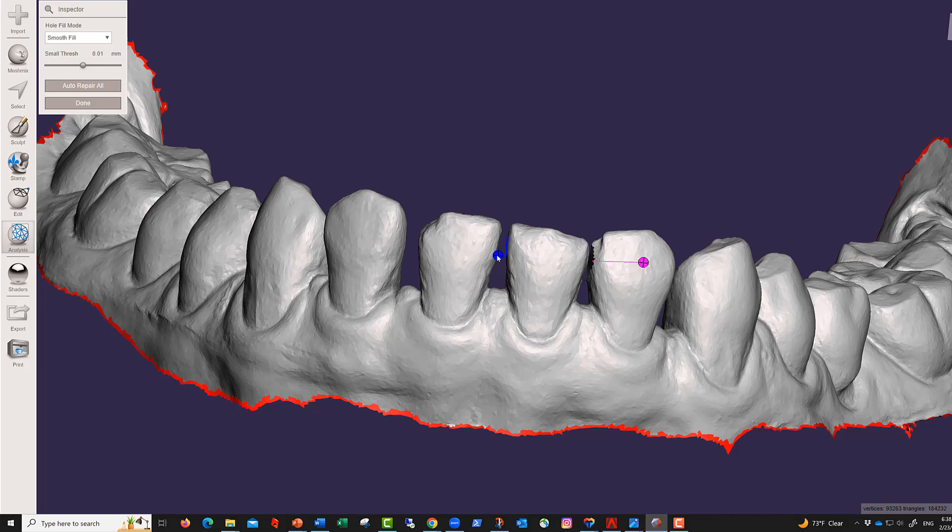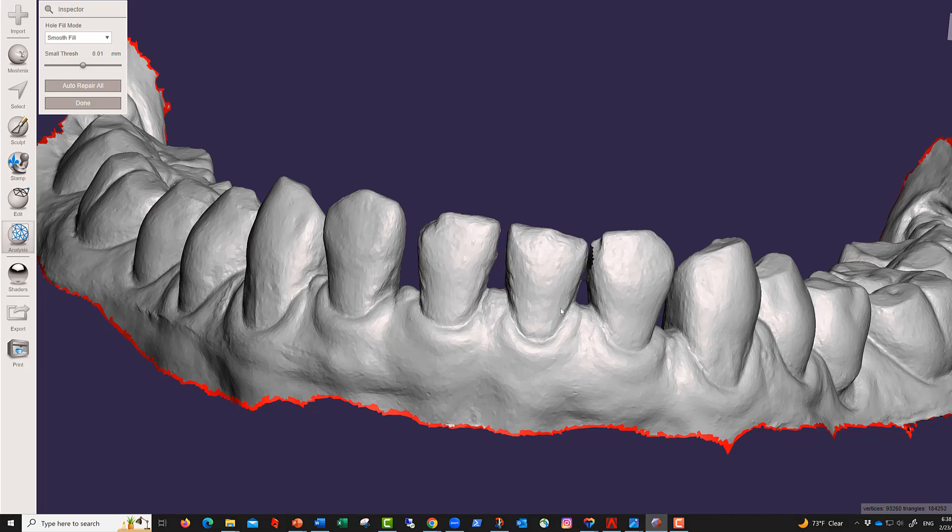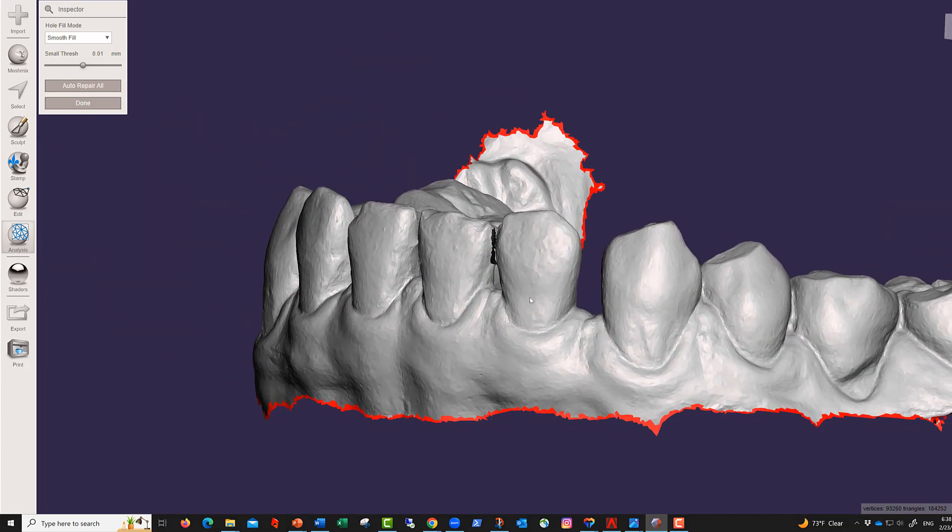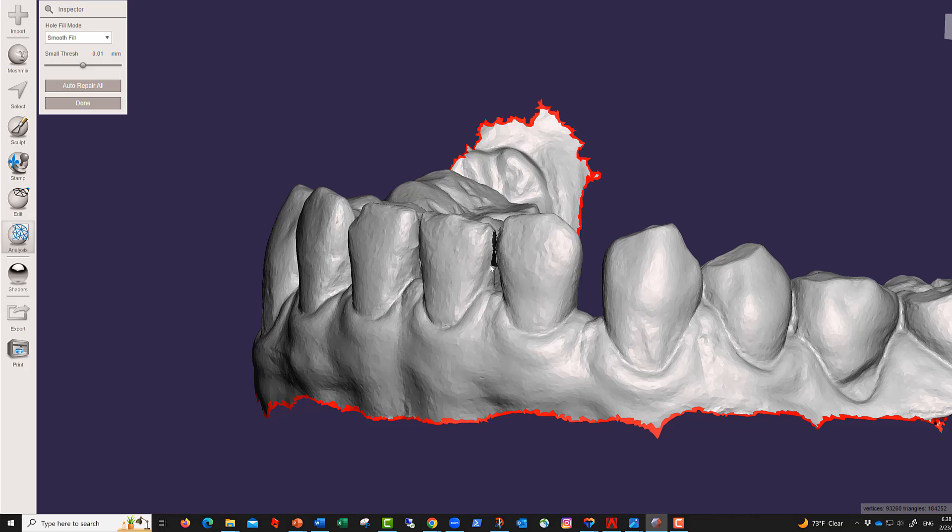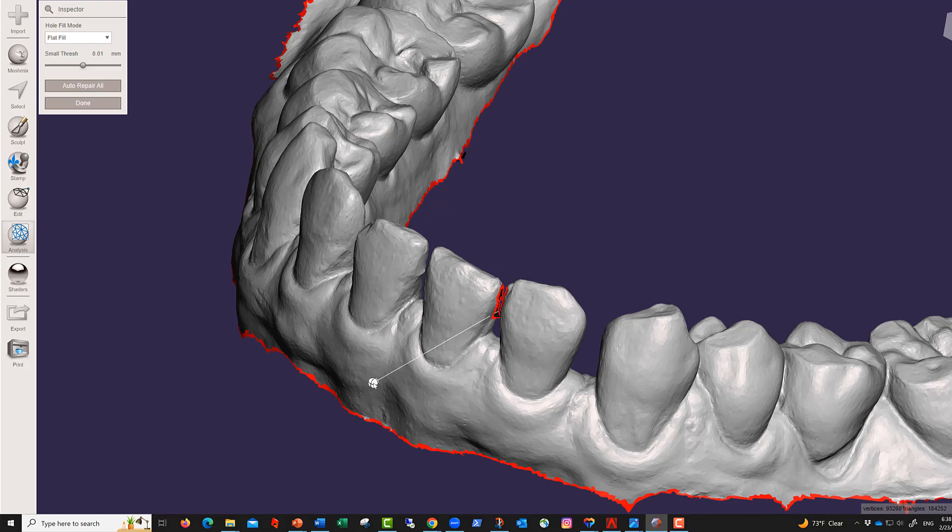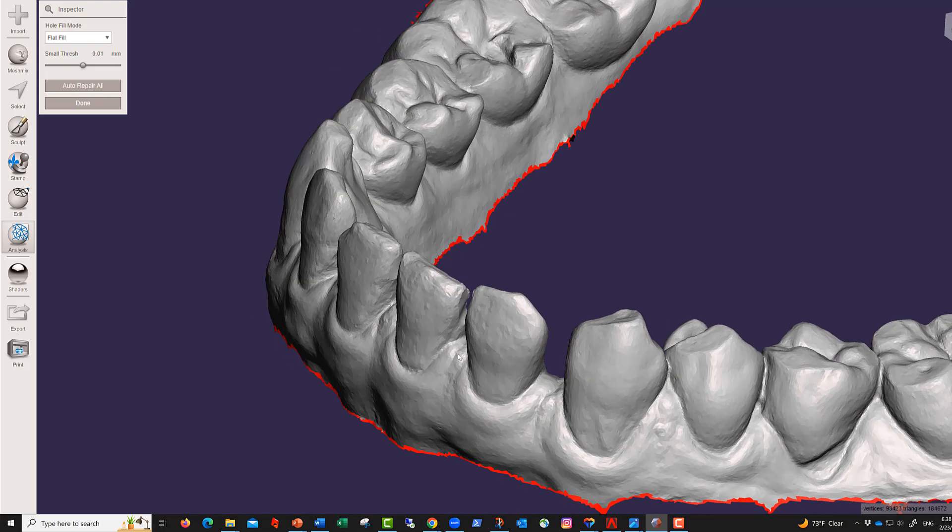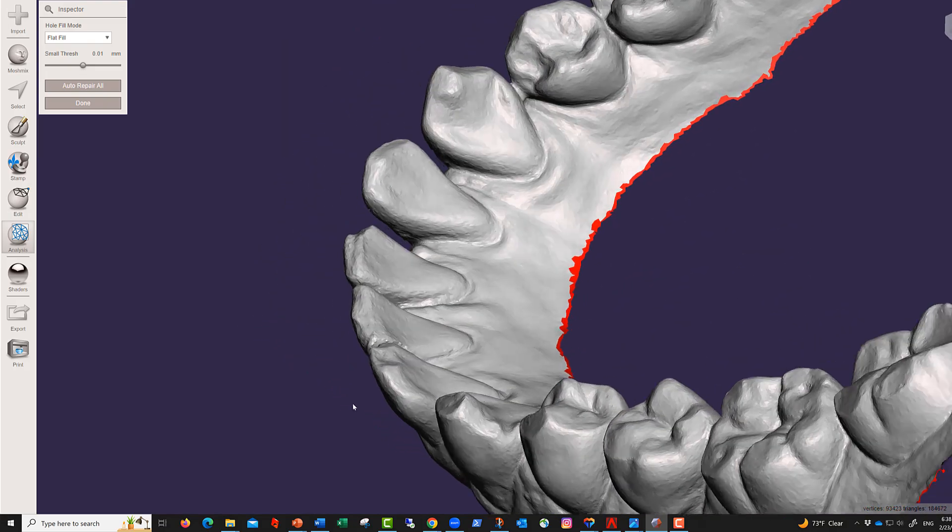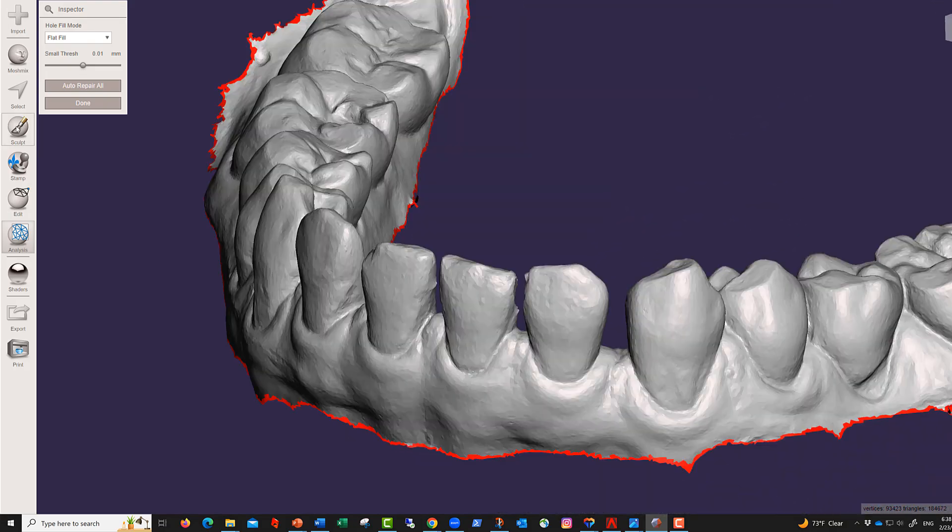I can click there, and this one was not filled. Then I'm going to inspect again, I re-inspect again, and this time this one comes in. So now it's all filled.